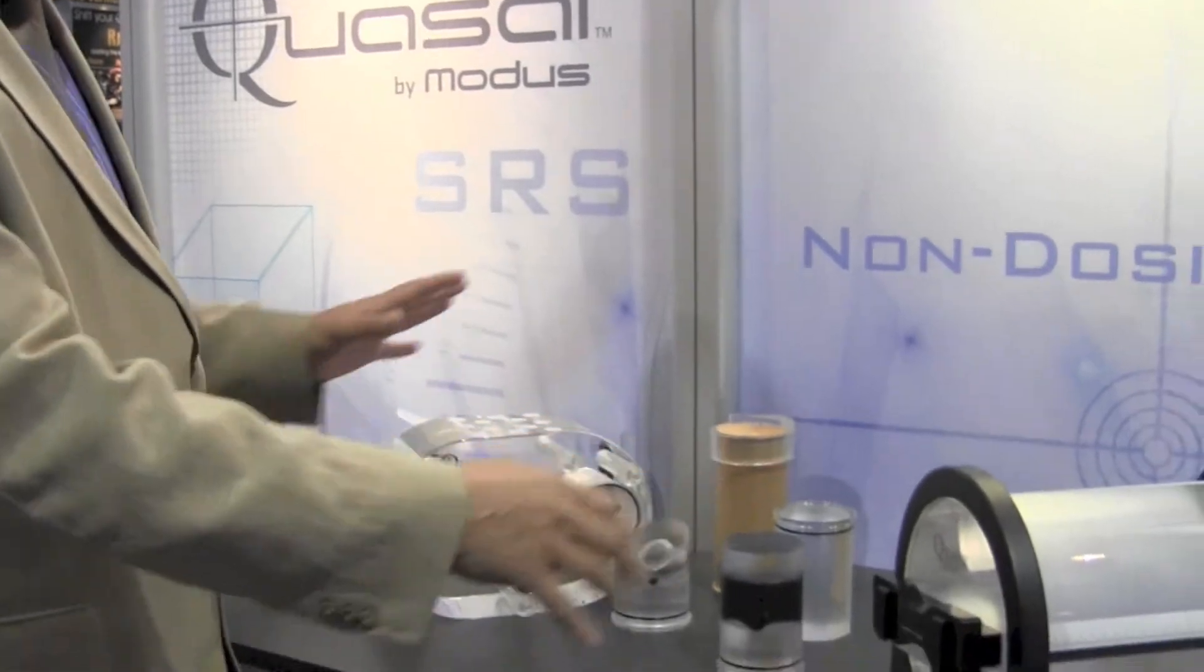Hi, I'm John Miller of Modus Medical here at Astro again and I'm here with the Quasar Phantom. You can see the three Phantoms here.